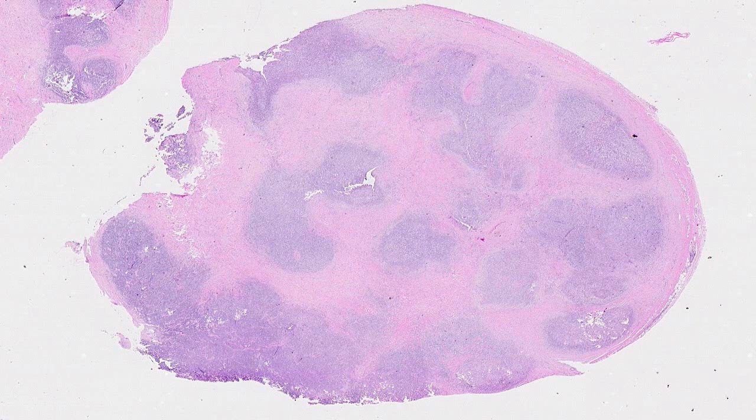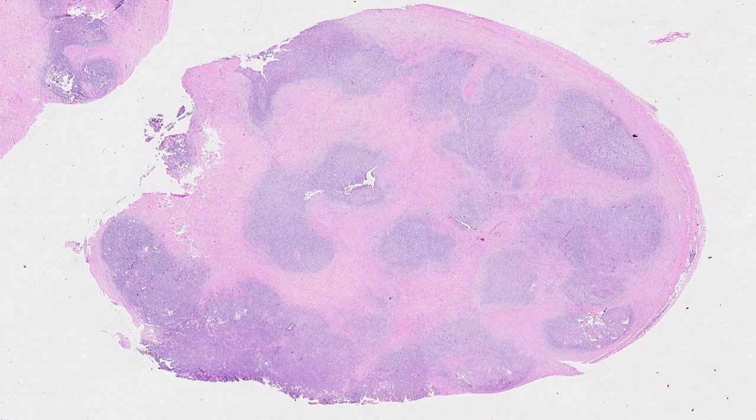Hi, my name is Mike Datto. I'm a pathologist from Duke University Medical Center. I'm actually a molecular pathologist, but today I'm going to take a look with you at this histologic slide from the Duke University School of Medicine virtual slide teaching data set.